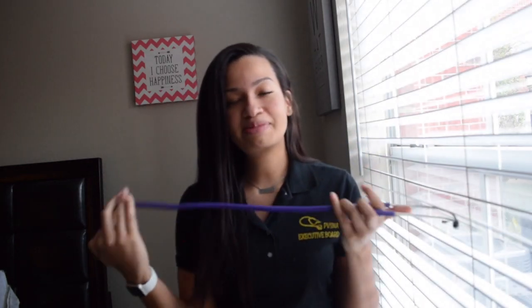I want to start off by talking about the stethoscope that I used my first semester of nursing school. Going into our nursing program, you're not required, but there's a little bag that they recommend you get out of our bookstore. The bag that you get, this stethoscope comes inside.